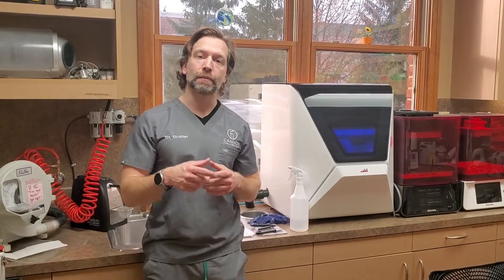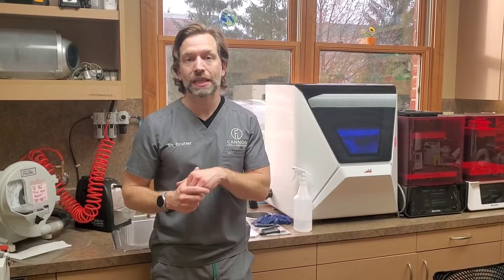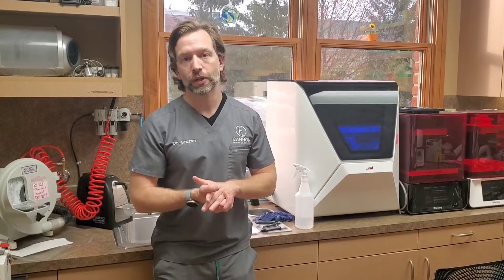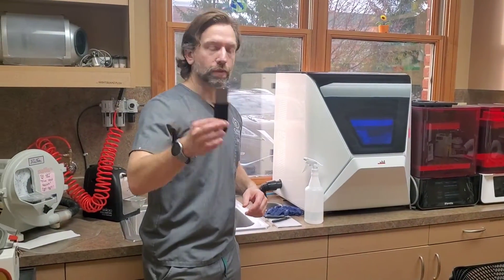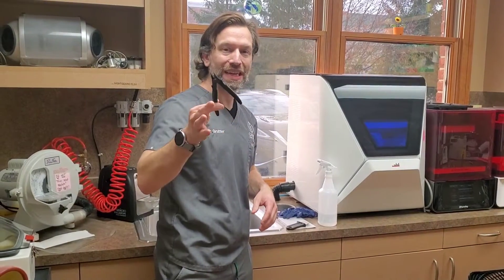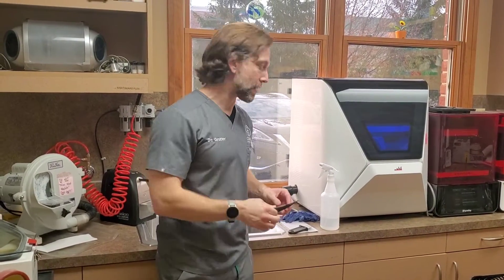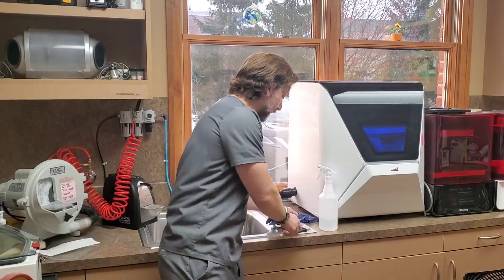This is actually just a flipper. I've shown videos recently on how to design a flipper in about five minutes if you're already designing a surgical guide in Blue Sky Plan, so check out that video. First, what do I have available? I've got the print and remover, nips to cut off supports if needed — a lot of times I don't need them — two pairs of gloves, and a patient bib.